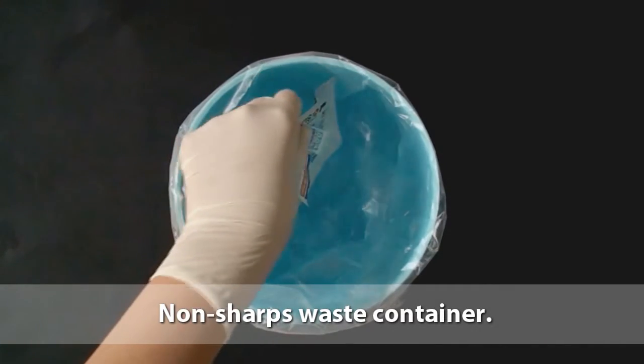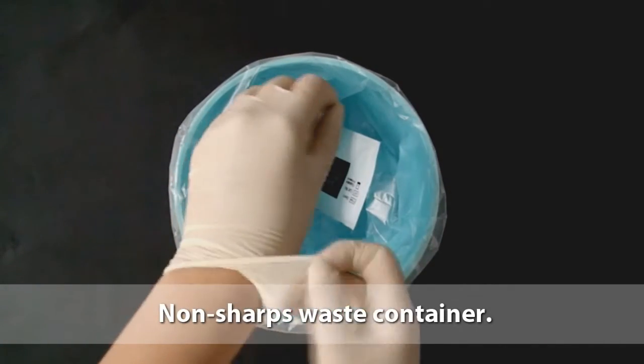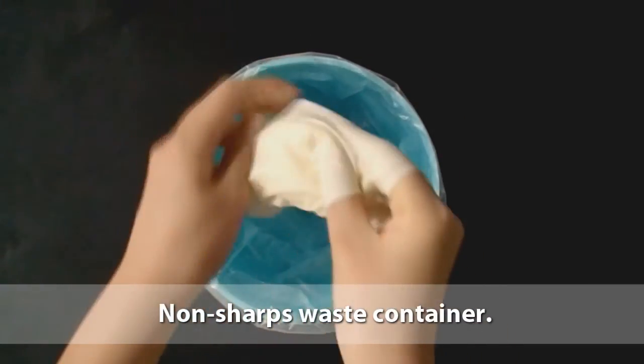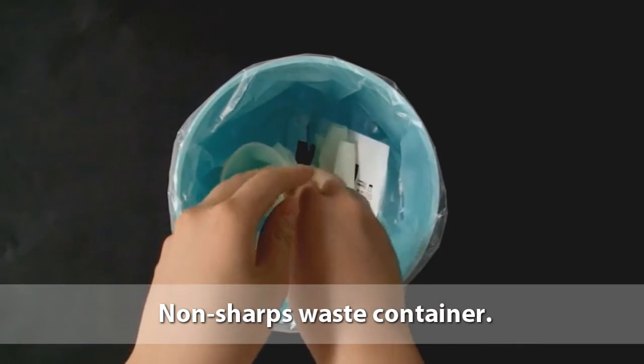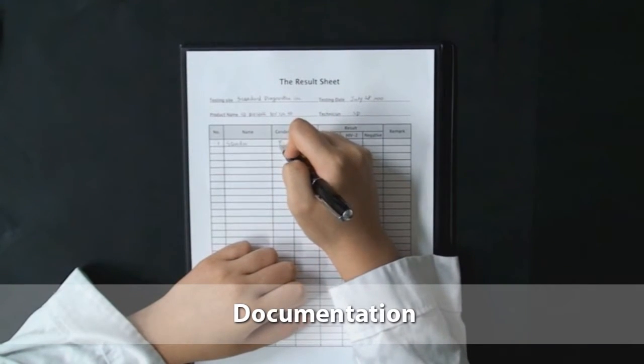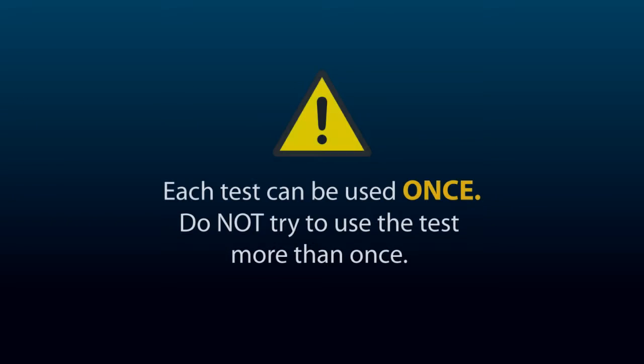Dispose of test materials such as the test device, gloves, alcohol swab, desiccant and packaging in a non-sharps waste container. Record the test results. Now remember, each test can only be used once. Do not try to use the test more than once.